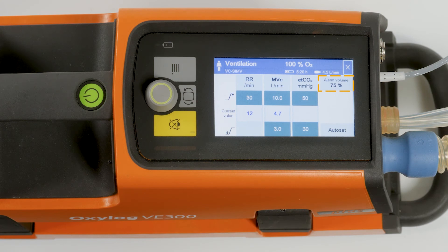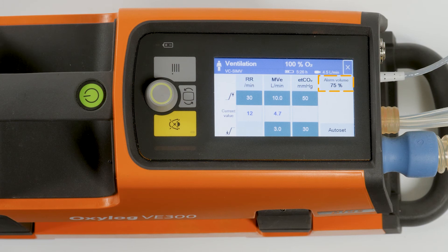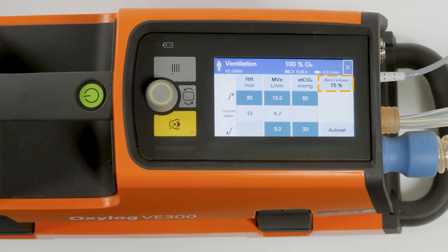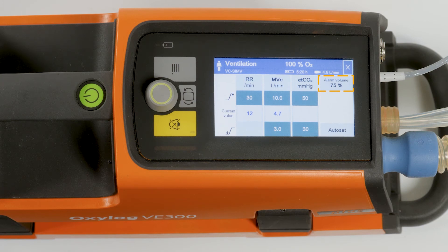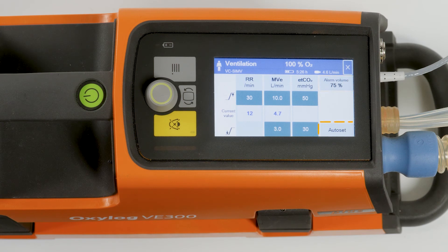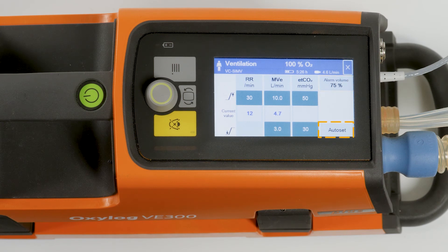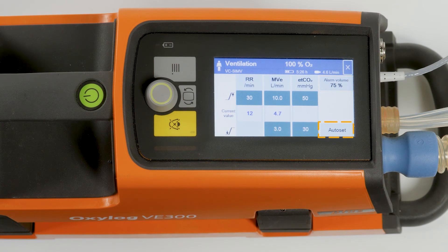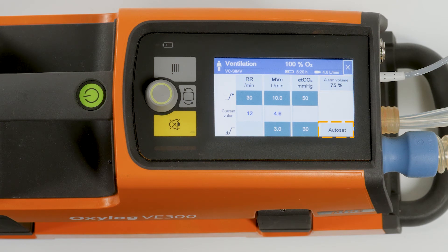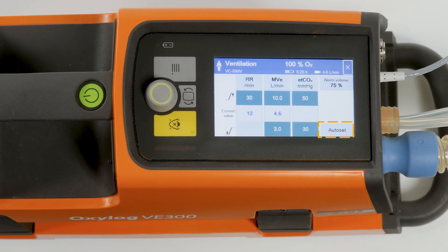With the button alarm volume, the alarm volume can be set in a range from 25 to 100%. The button Auto Set enables the upper and lower alarm limits to be set automatically.